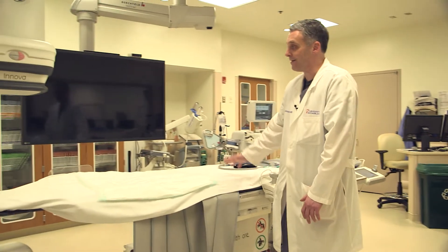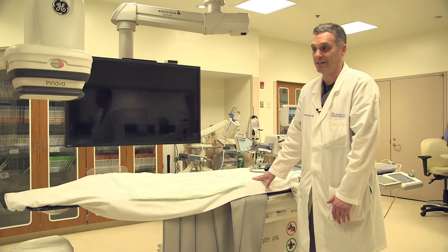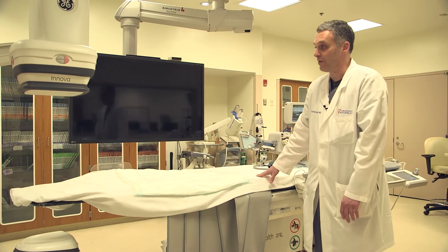Once the patient arrives, he or she will be transported onto the table, which is here. These are the pieces of equipment that we have to allow us to see and do what we need to do to relieve that blockage.